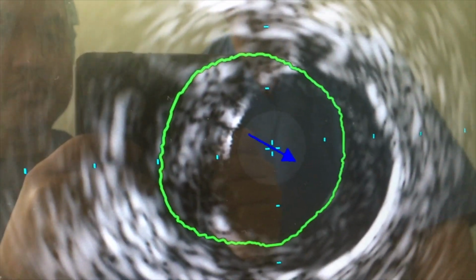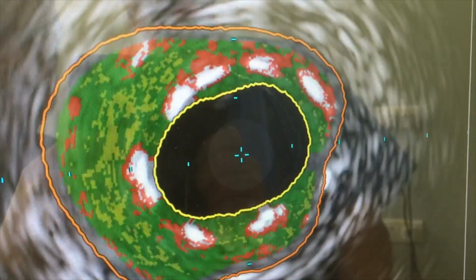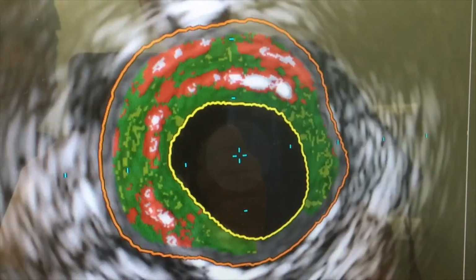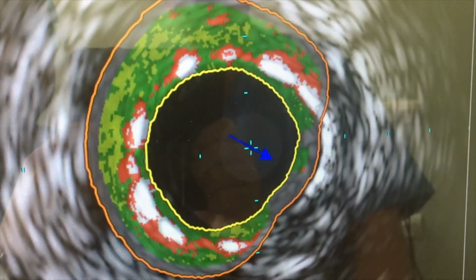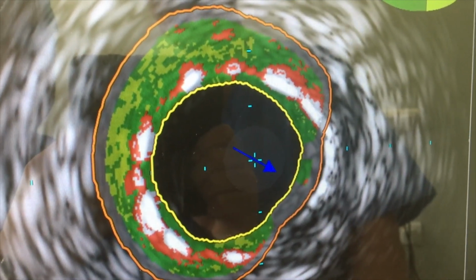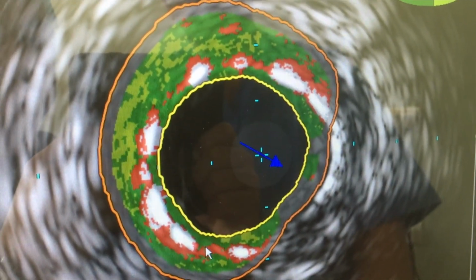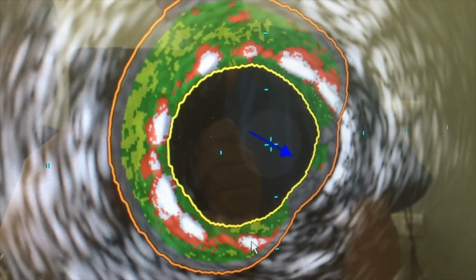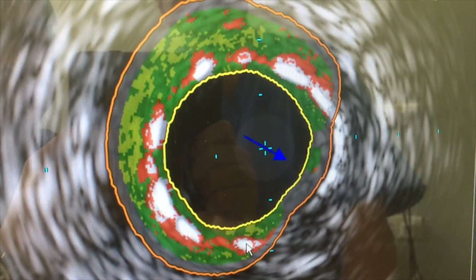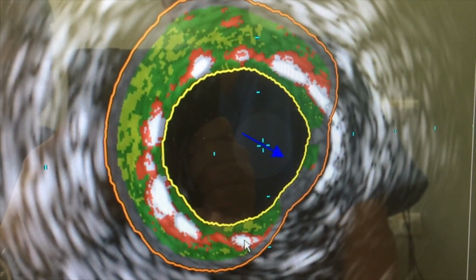So if I play this and press the virtual histology button, this is what you get. So what you are getting is green, yellow, white and red. And this is telling you where you have calcification. Okay, so in this case there is a stent here. So you can see these white are actually representing the stent borders, but otherwise if the stent was not there, this would be calcium. Then the red is the lipid core or the necrotic core, lipid rich plaque. The yellow is the soft one and the green is more fibrotic.